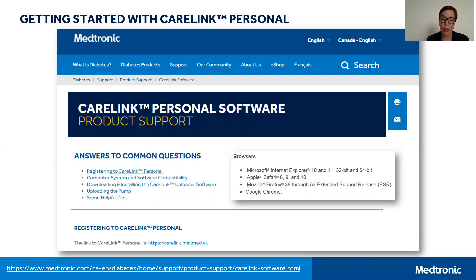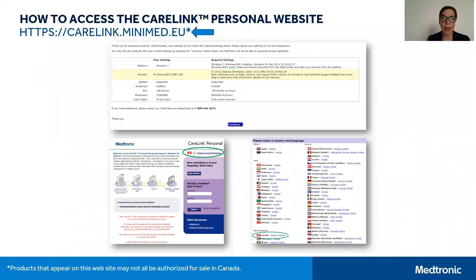You can also access the CareLink Personal landing page directly from this support page. By accessing carelink.minimed.eu, you will arrive at the landing page for CareLink Personal software. If you are using Chrome as your browser, you may find a pop-up appears first — simply press Continue to proceed.